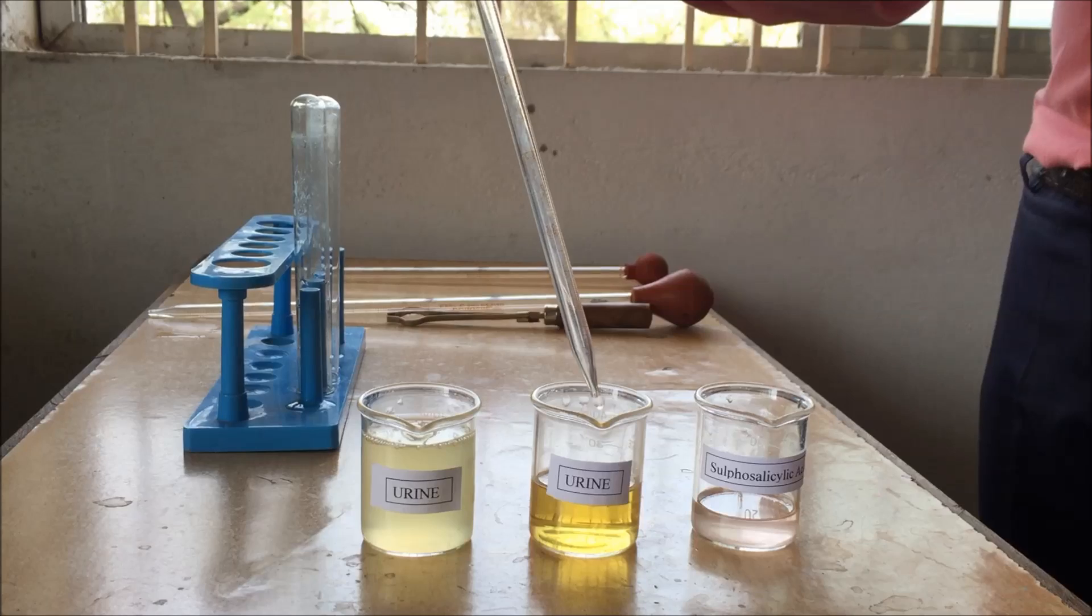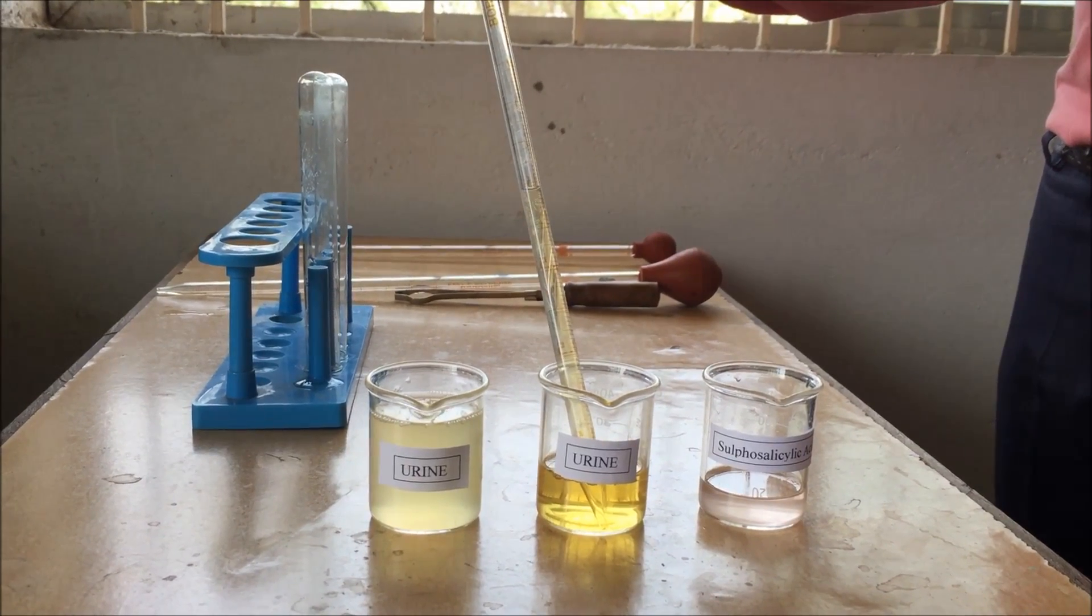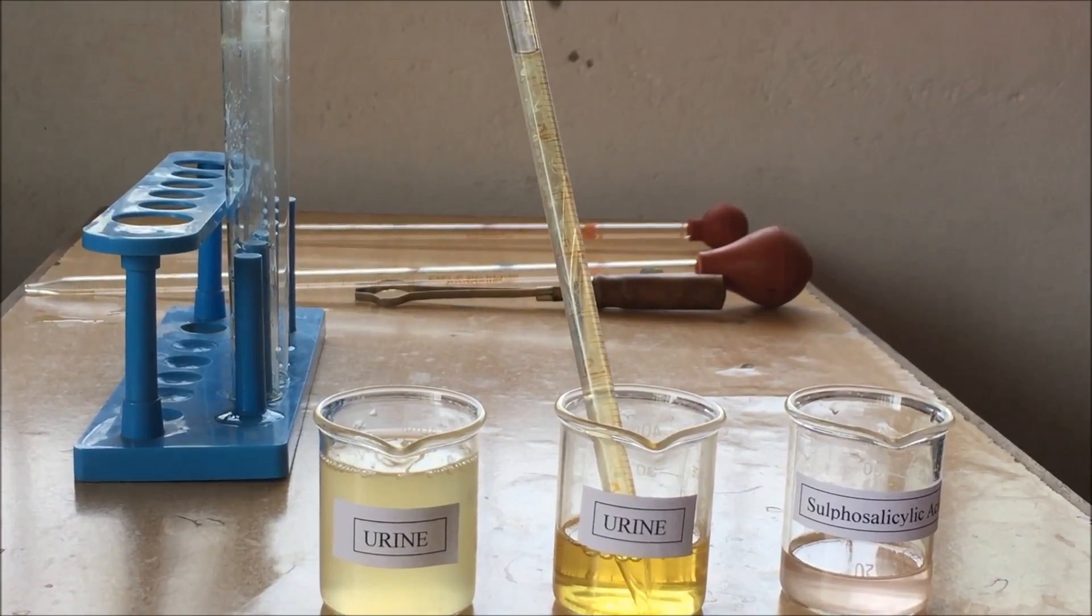Welcome. Today we will determine the albumin content in urine. To perform this experiment, we will need a freshly collected urine and a dummy of urine which is a mixture of water, urine, and egg albumin.